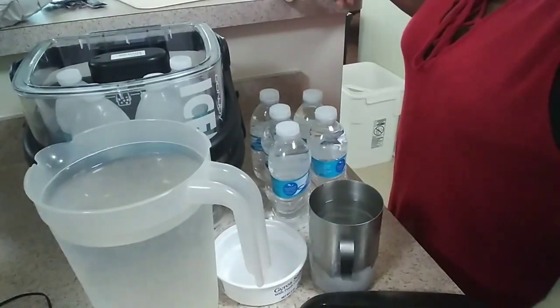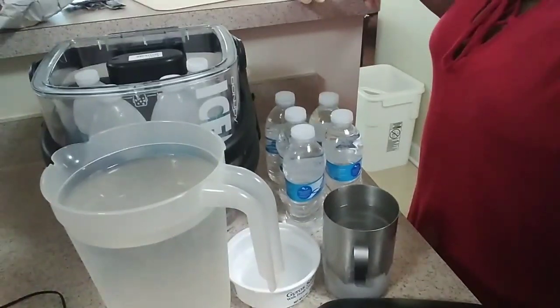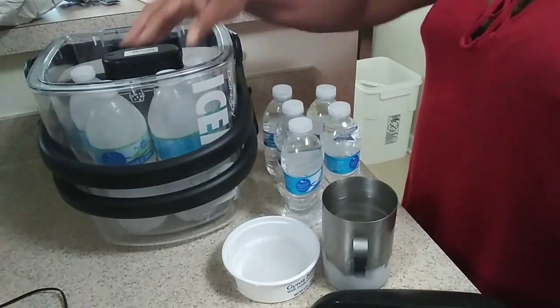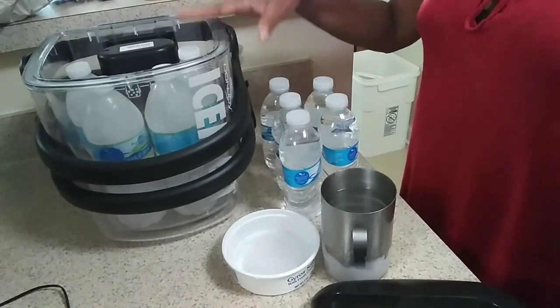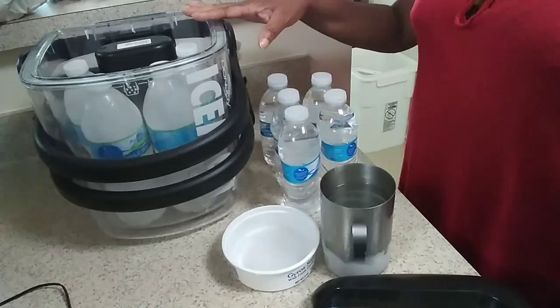This is the machine that I am speaking of, y'all. I'm going to try to turn the camera to it. You might see some weird things in the back — please excuse me, that's just my house. So this is the machine right here. This is the Iceman machine. It is a water therapy machine, and it was given to my son after he had his knee surgery.